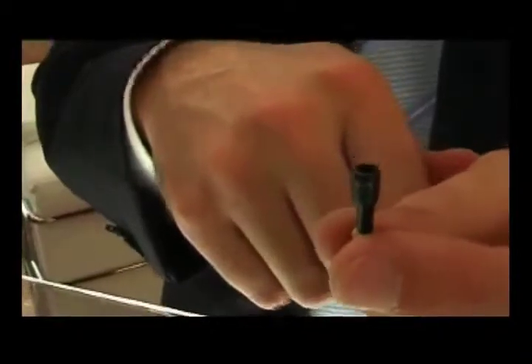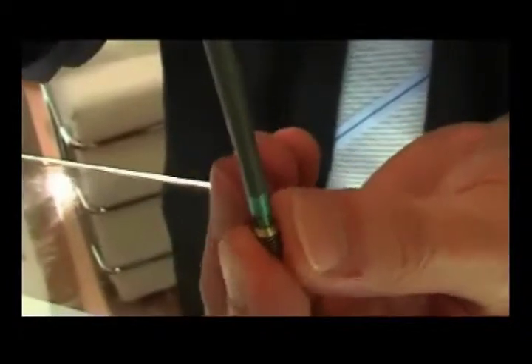Only by hand, or there are some instruments where you can ensure that the implant is seated to the bottom of the osteotomy. You can put this tool in and just simply give it a gentle tap and make sure the implant is at the bottom of the osteotomy.